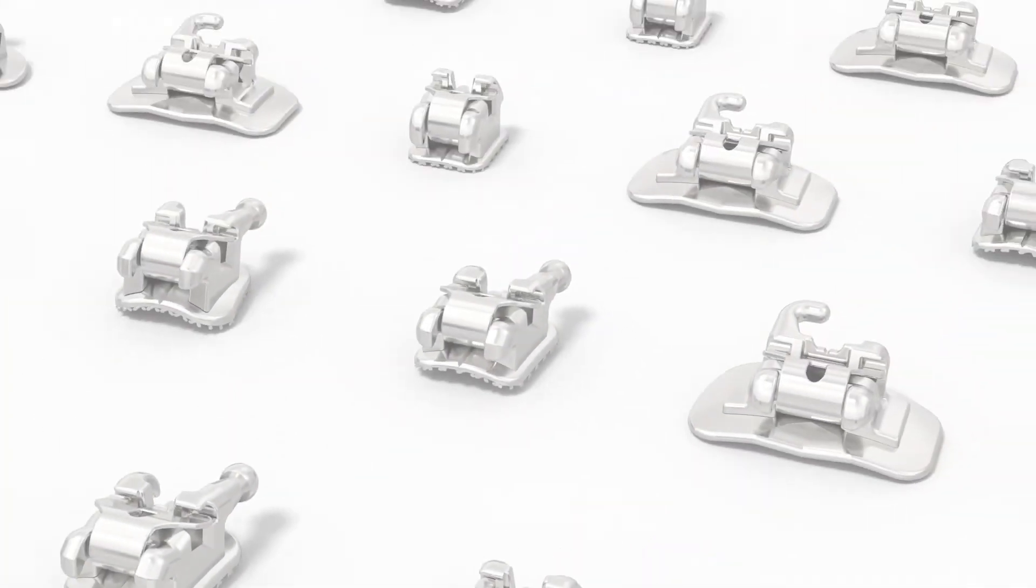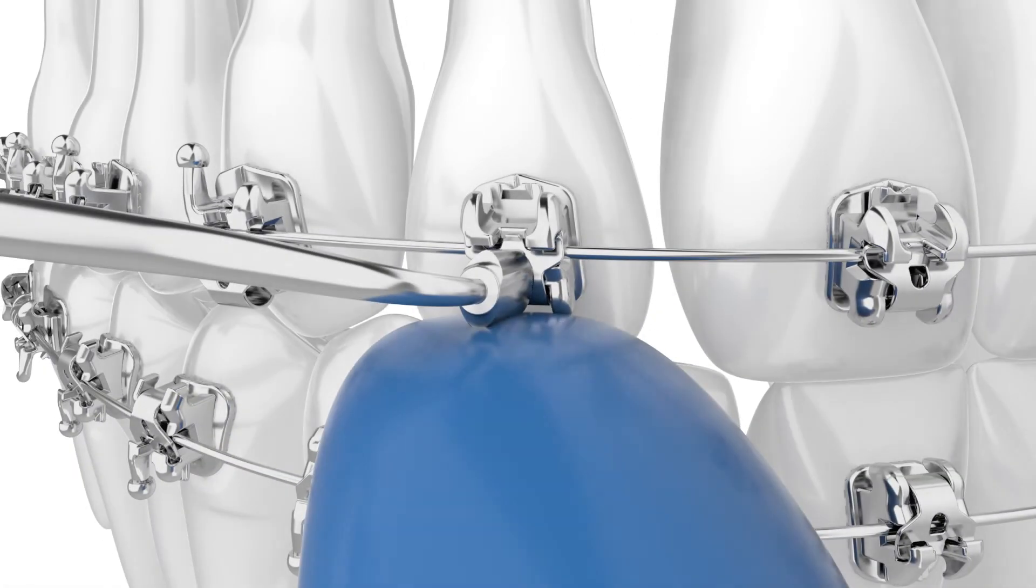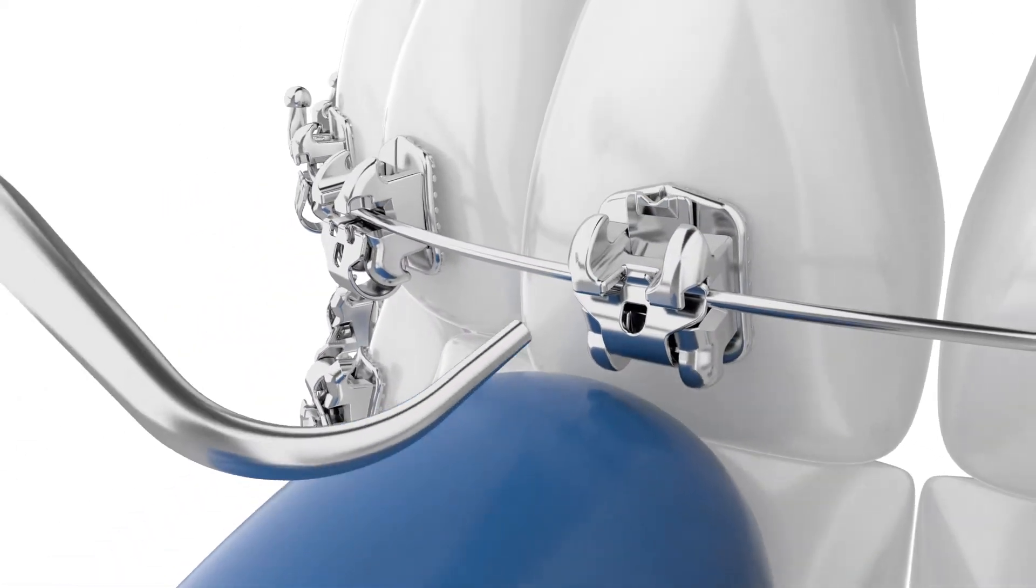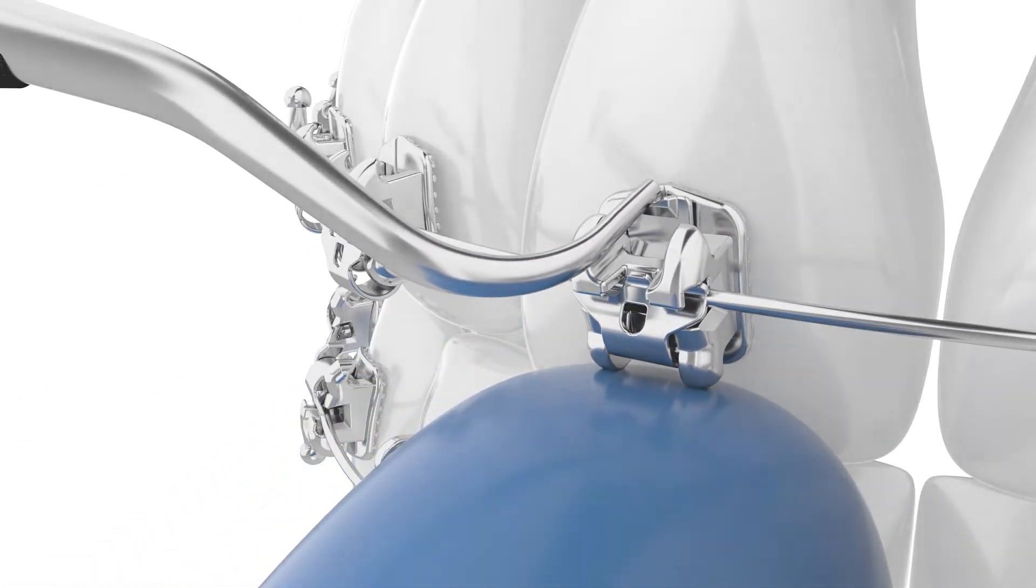The Empower family and its system options provide your orthodontist versatility and the tools to customize your treatment to your specific needs rather than following a one-size-fits-all approach. After all, no one's teeth are the same.